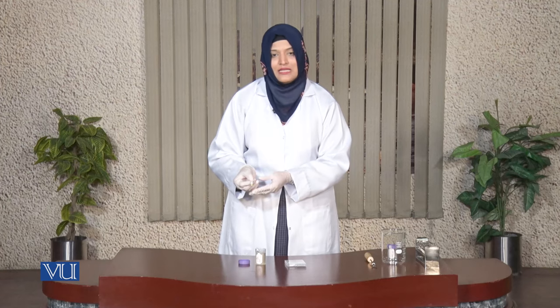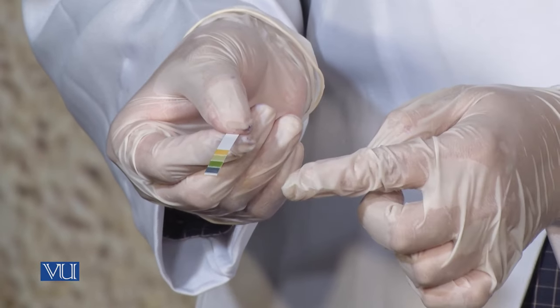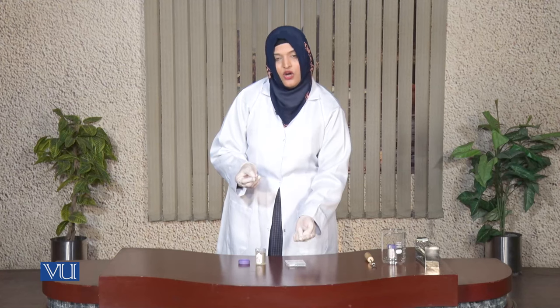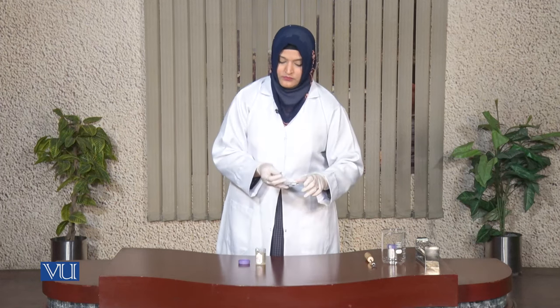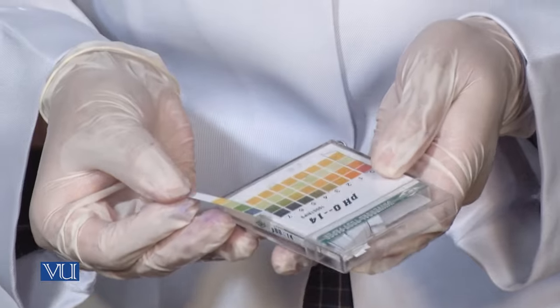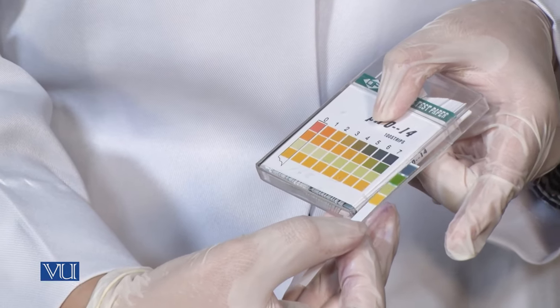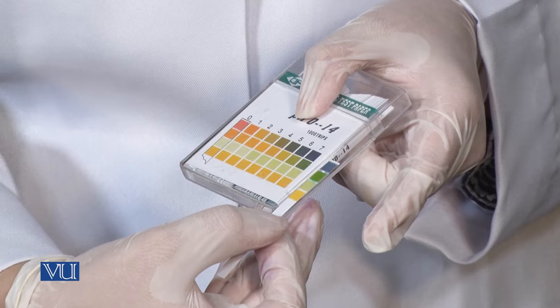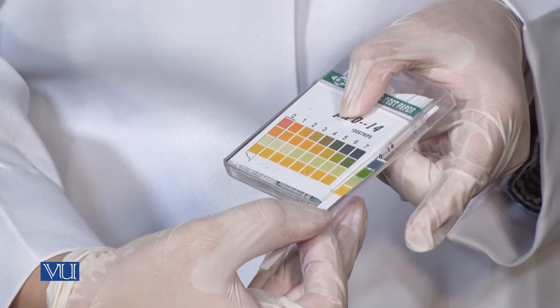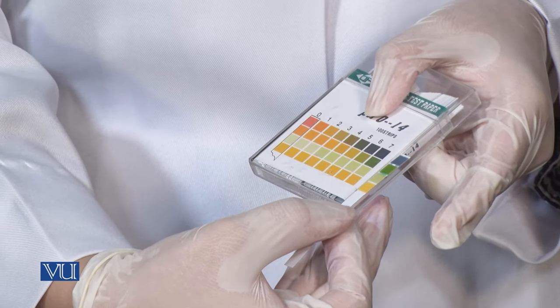After dipping the strip in the collection tube, compare the colors on the strip with the color scale given on the box. After comparison, we will get to know the pH of the urine sample. As you can see, the pH strip is showing a color the same as the scale 6 to 7, so the urine sample is considered to have a pH of 6 to 7, which is considered normal.